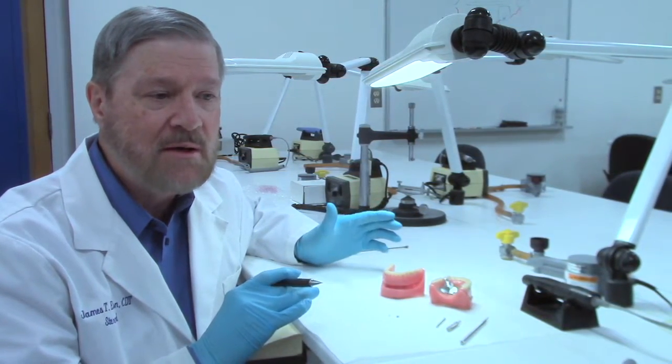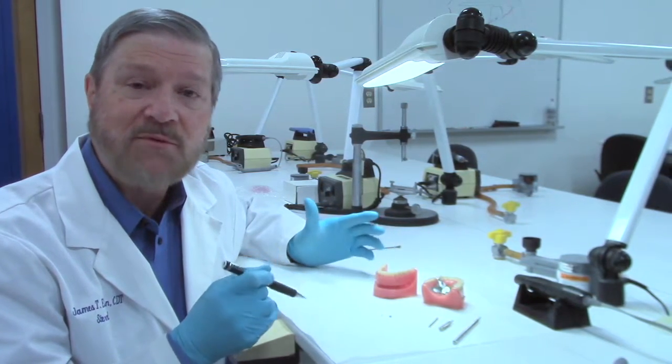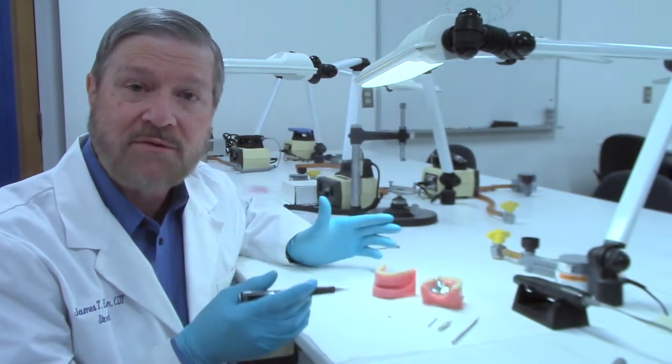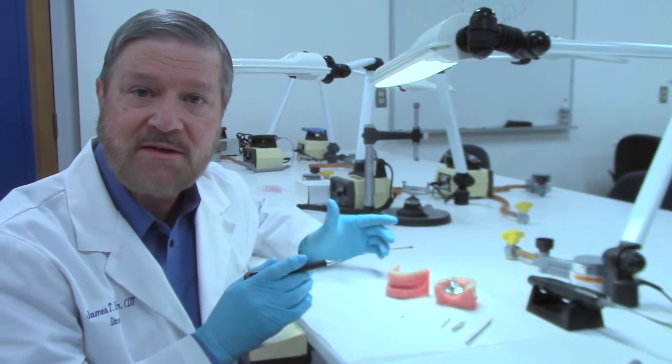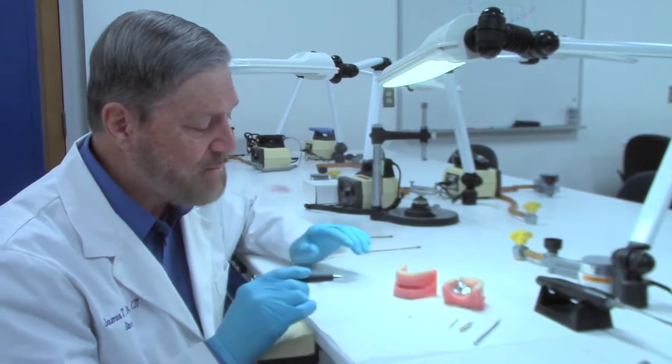That would be on top of a root cap coping, on top of a bar, on an implant abutment, or even on the ERA implant itself. And I've got examples of each.